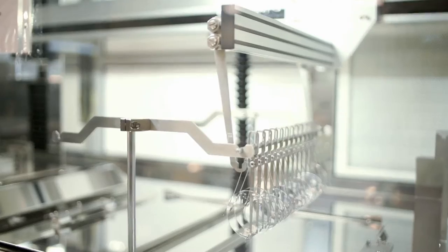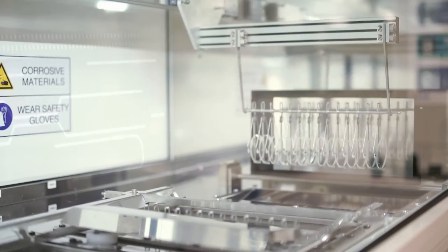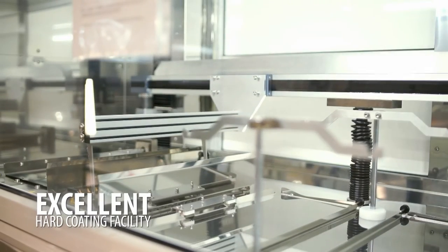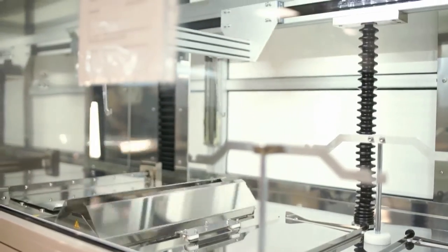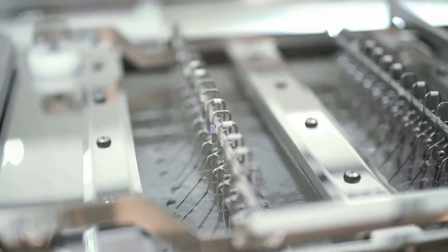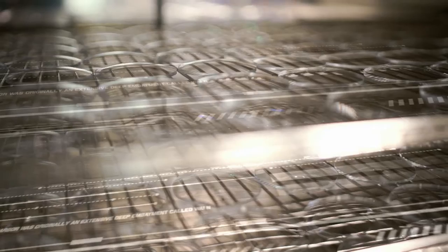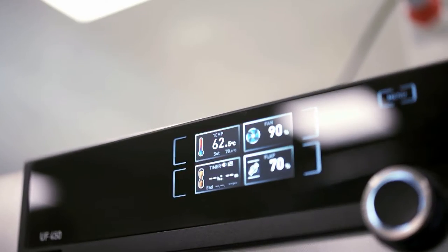Following a quality check, the lenses are sent for hard coating. In the hard coating process, the lenses are cleaned thoroughly and dip-coated with scratch-resistant varnishes in highly controlled conditions with robotic equipment.